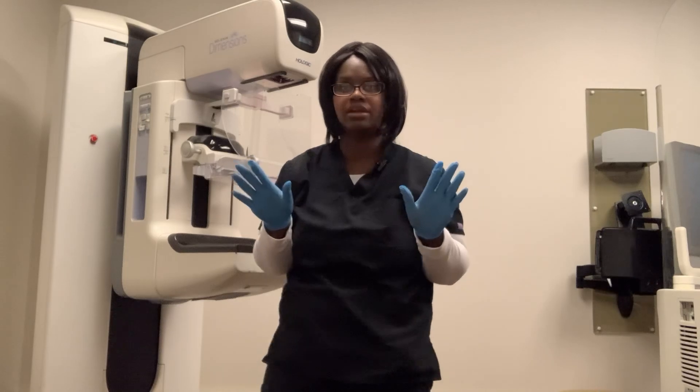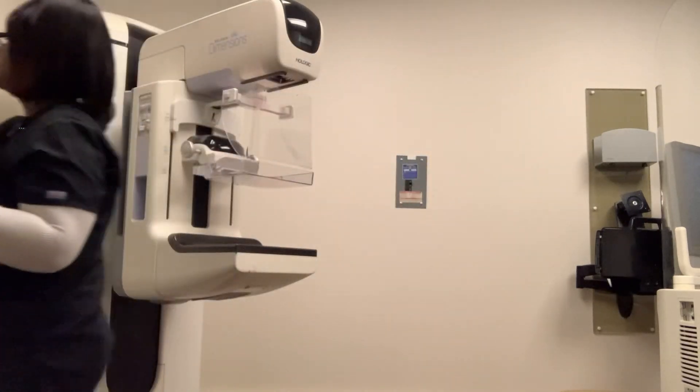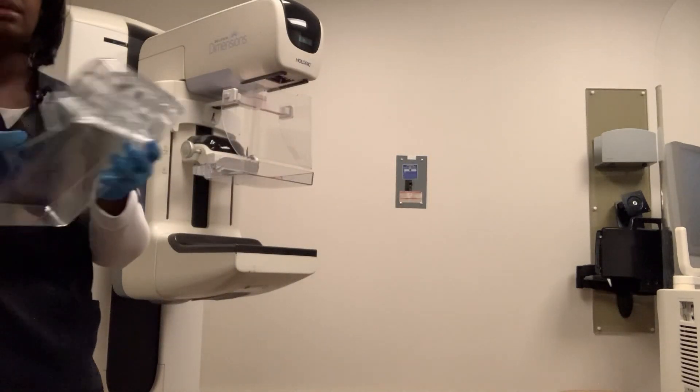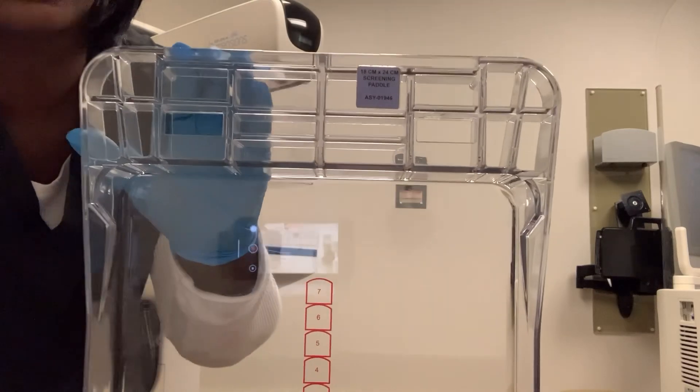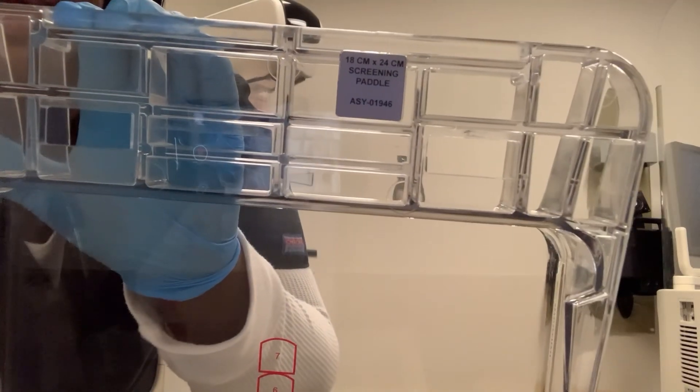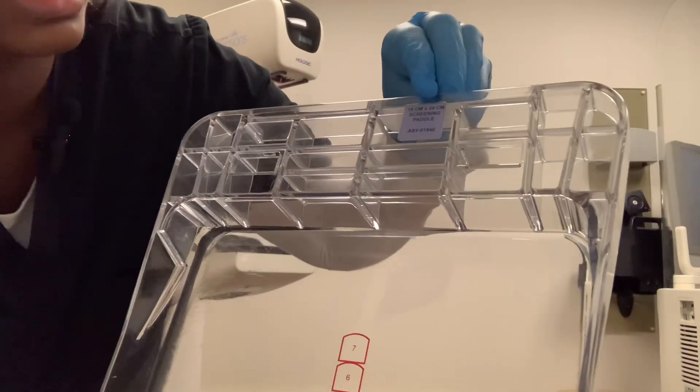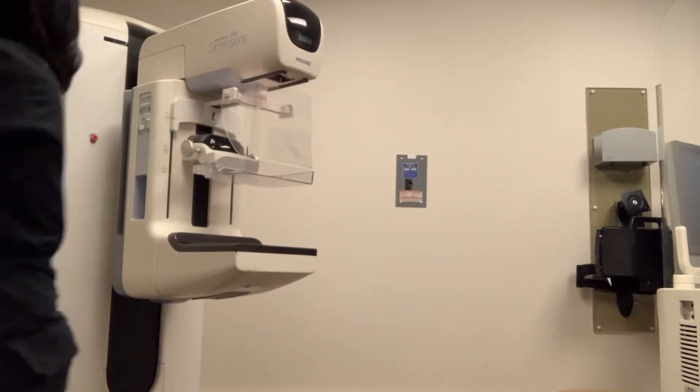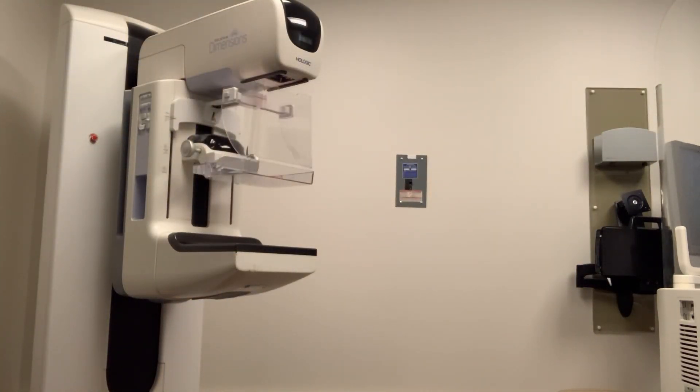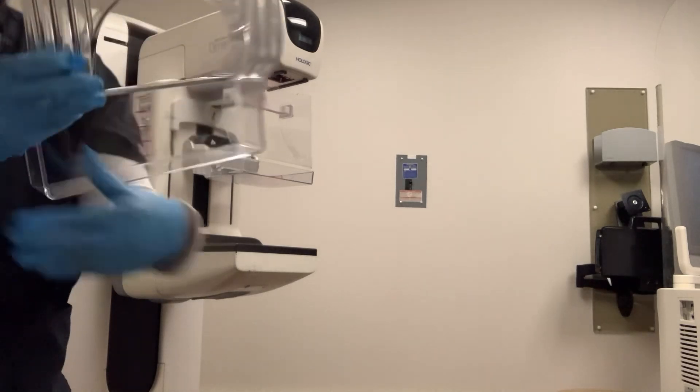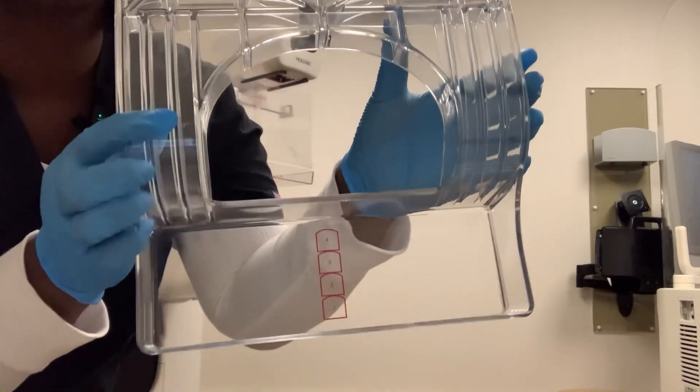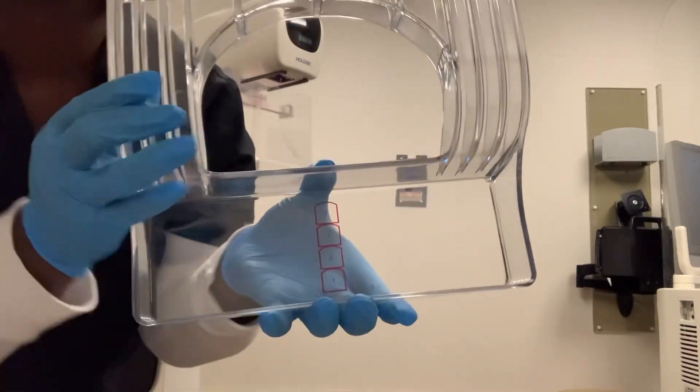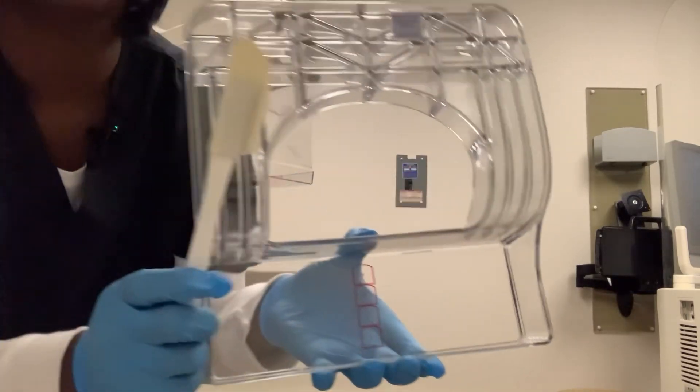Then I have more paddles I will show you. This is for like a smaller, tight breast. And then you can see right here, it's 18 by 24 centimeters. If a patient has very small breasts, you can use this. And then you can also use your spatula.